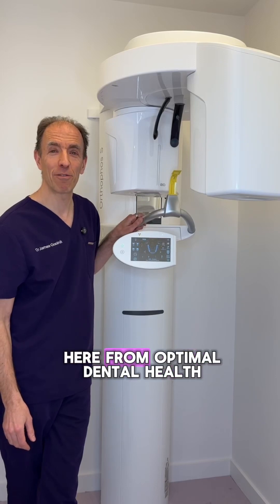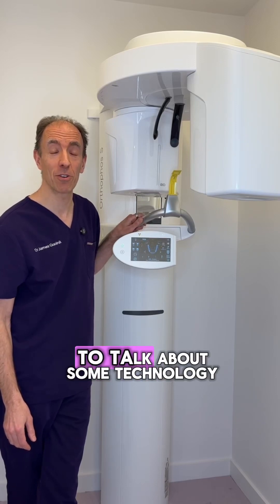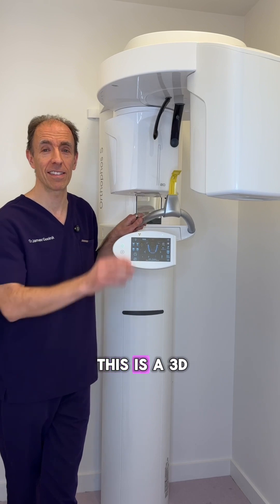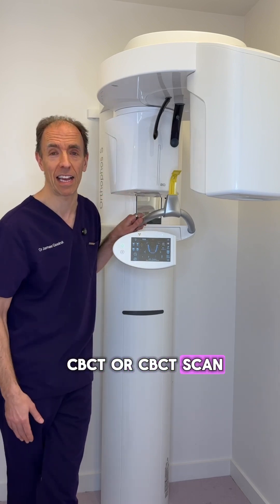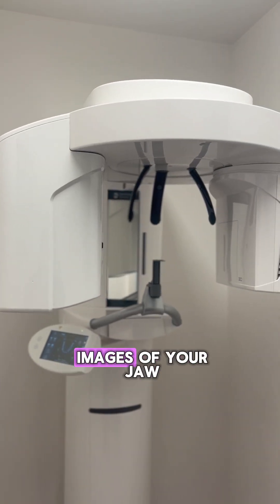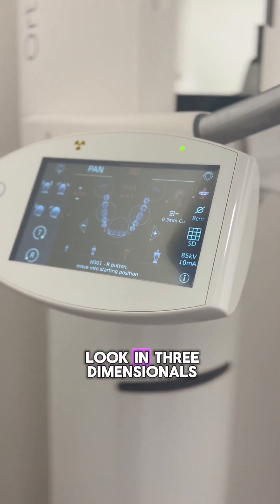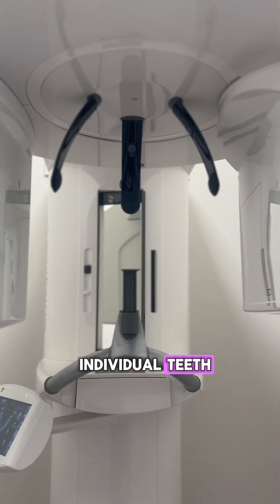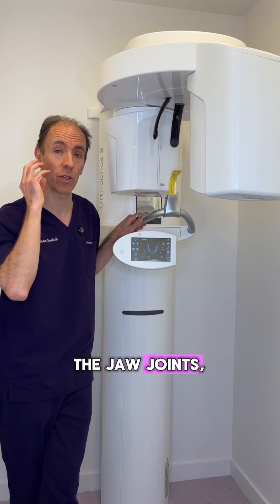Hi, this is James here from Optimal Dental Health, and today I want to talk about some technology with the practice. This is a 3D CBCT scan, and this shows us images of your jaw, so we can actually look in three dimensions at what's going on with the individual teeth, the gum, the bone, and the jaw joints.